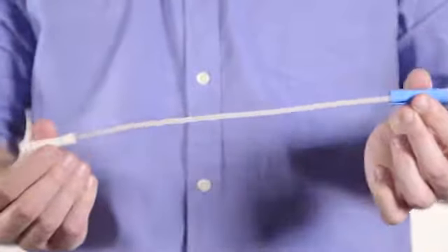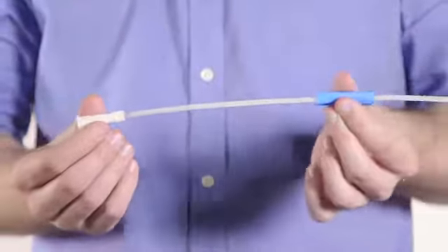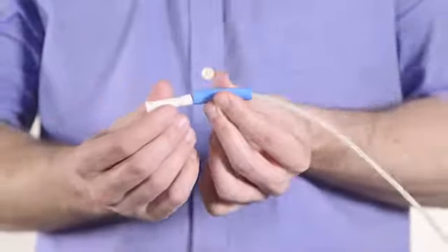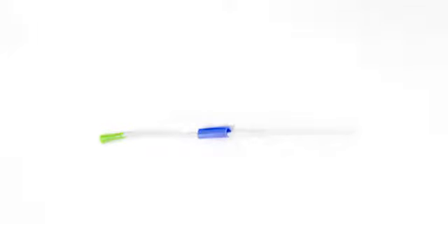By using the no-touch handling strip, you can perform catheterization easily without ever touching the catheter. This helps to minimize the risk of infection by maintaining the sterility of the catheter.